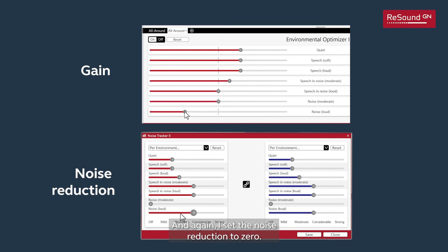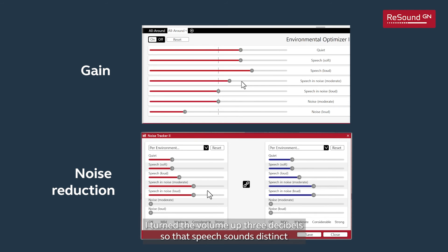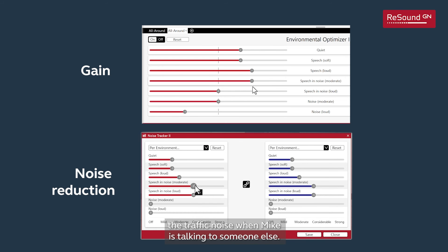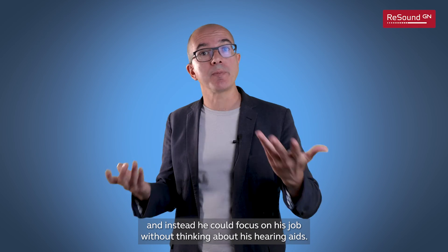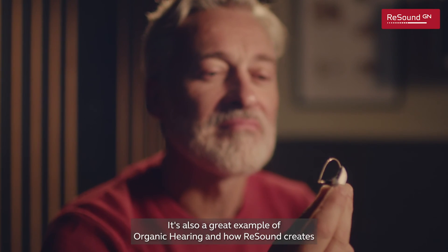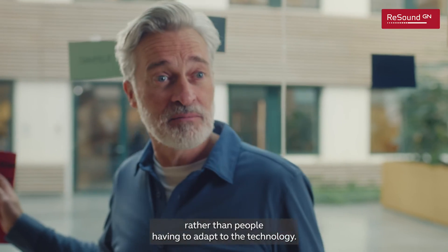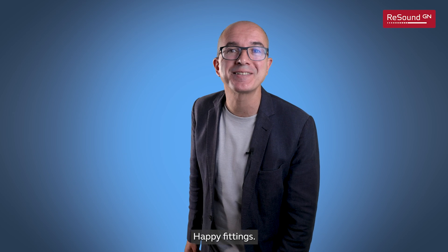I also set the noise reduction to zero for loud noise. Now, when someone talks to Mike in both moderate and loud noise environments, I turned the volume up three decibels so that speech sounds distinct above the background noise, and I set the noise reduction to minus six to attenuate the traffic noise when Mike is talking to someone. Mike was so happy — he didn't have to change programs back and forth and could focus on his job without thinking about his hearing aids. With the Environmental Optimizer, you can easily personalize every fitting. It's a great example of how ReSound creates hearing solutions that adapt organically to every need. Give it a try — it's going to make your fittings so much easier and faster. Happy fittings!